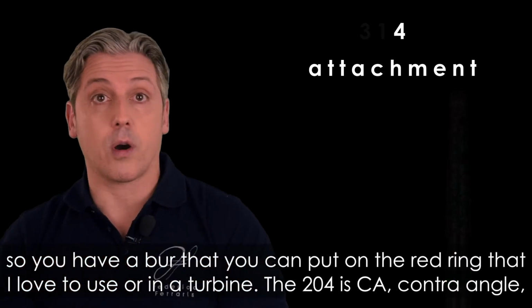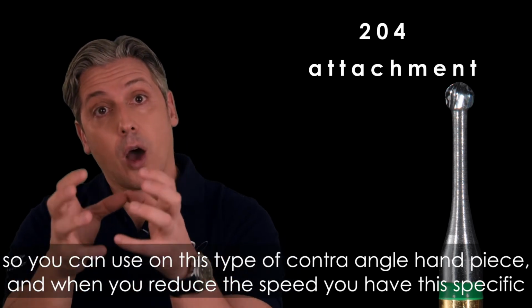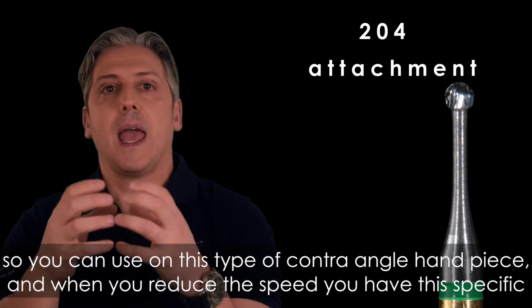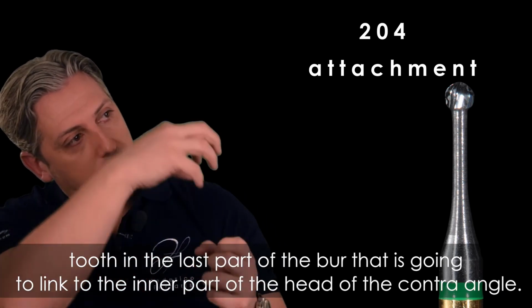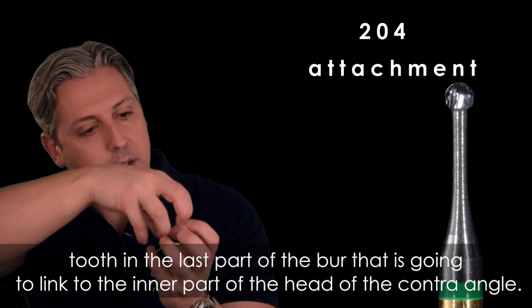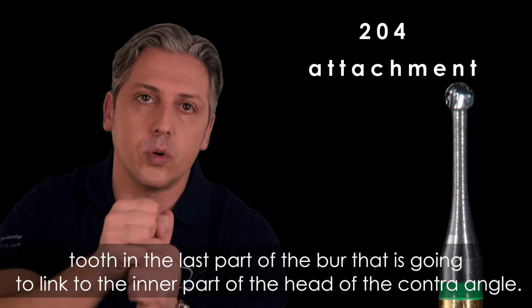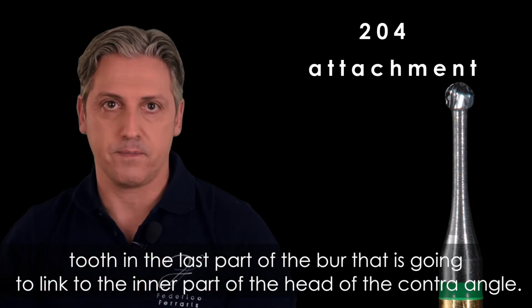The 204 is CA, contra-angle, so you can use it on this type of contra-angle handpiece, and when you reduce the speed, you have this specific tooth in the last part of the burr that is going to link to the inner part of the head of the contra-angle, okay?